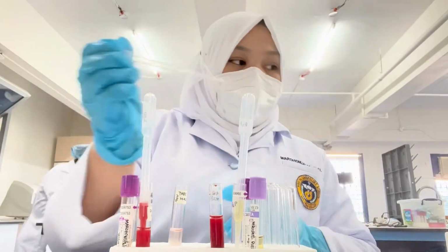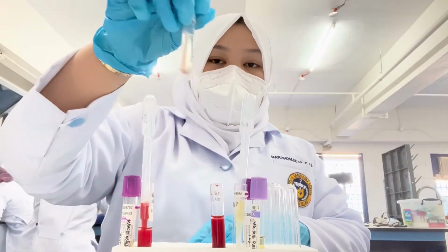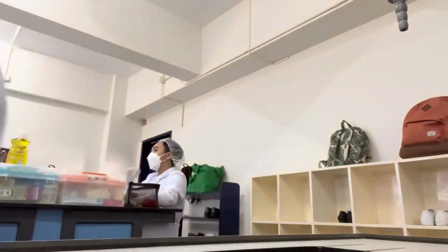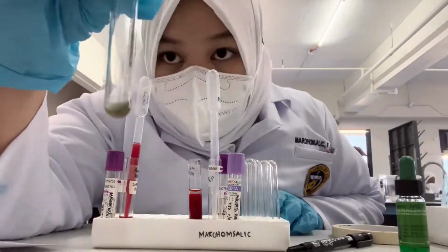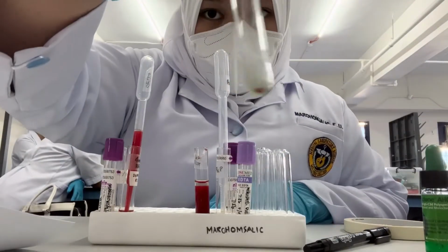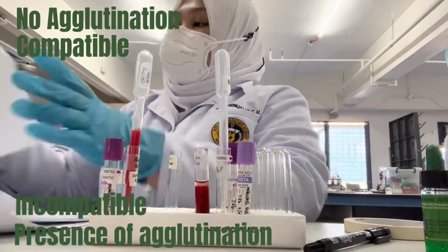Step 5, wash the red cell 3 times with saline and completely decant the final wash. In this step, follow the steps that are presented in the washing of RBC. Step 6, after pre-washing, add 2 drops of AHG to the dry red cell bottom and mix well. Step 7, centrifuge for 15 seconds at 3,400 RPM and observe for agglutination. If there is no agglutination, record the result as compatible. Presence of agglutination means incompatible.